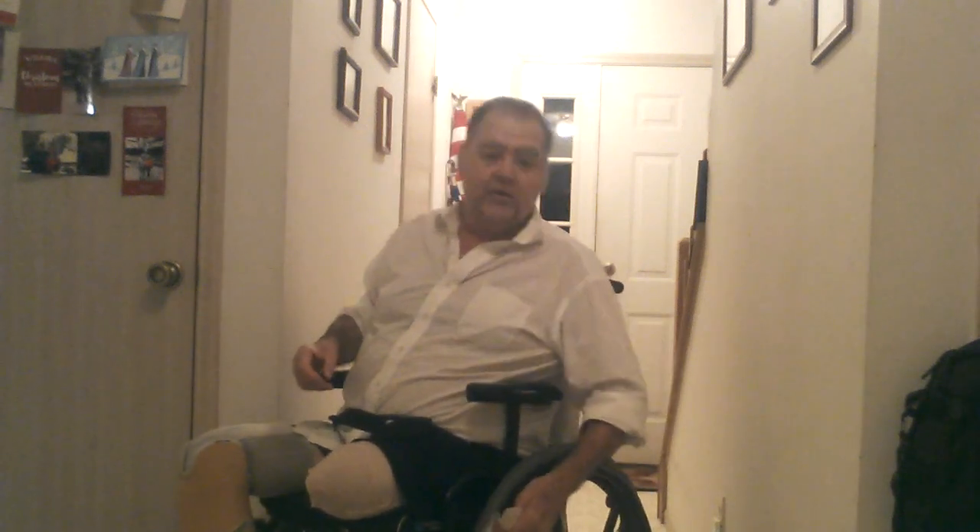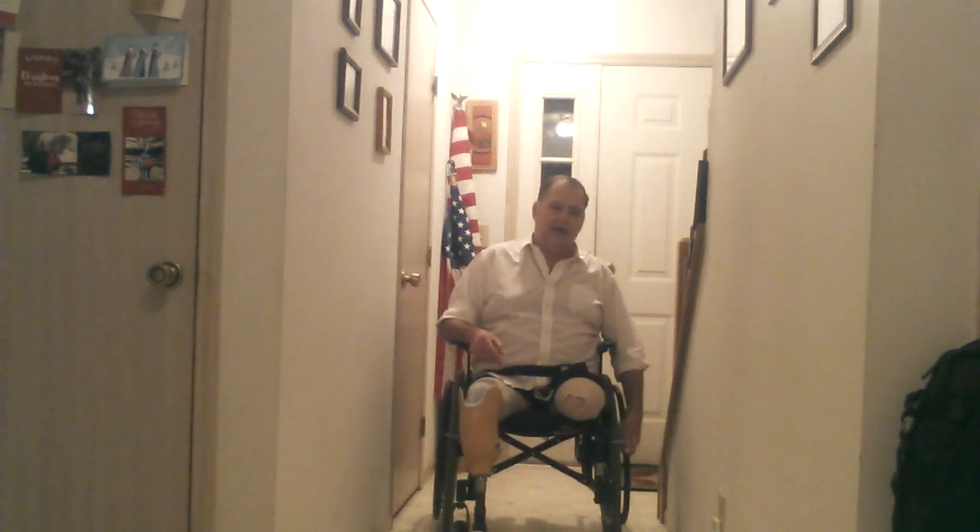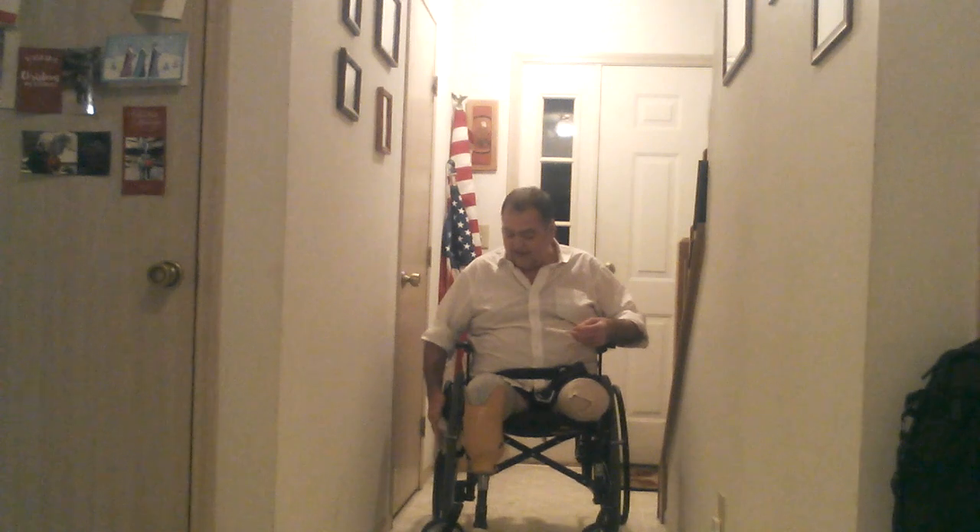The big things I have my hands on regularly are the push rims — the smaller wheel inside the wheel that we grab hold of to propel ourselves forward, backwards, in circles, whatever. What I do is take one of these wipes and wrap it around the push rim, then push myself back so it goes all the way around. Instead of trying to bend over with my big belly in the way, I just put it on that side. Then I put it in the other hand, wrap it around the other push rim, and bring myself forward.